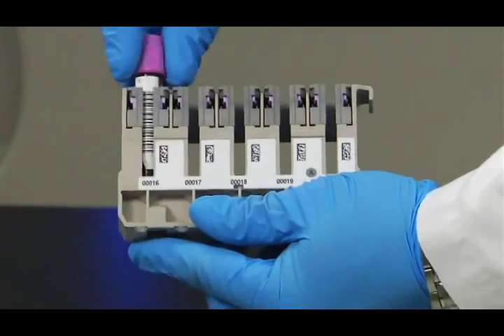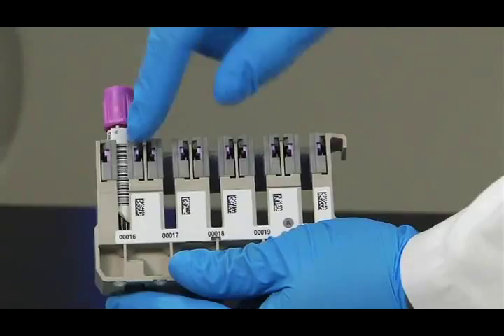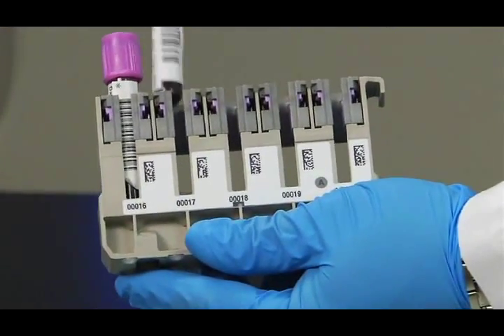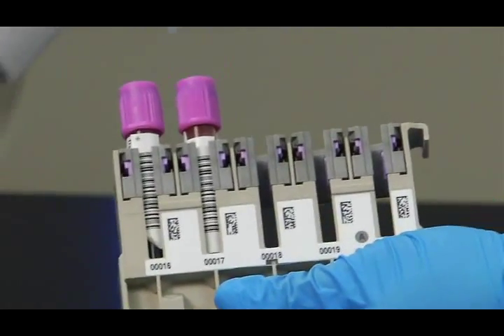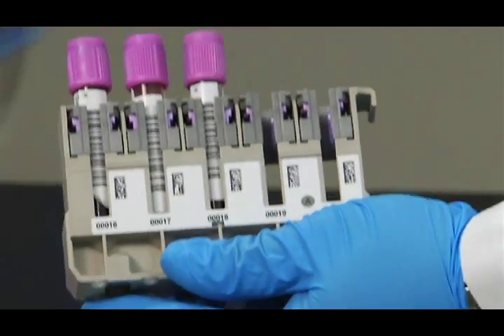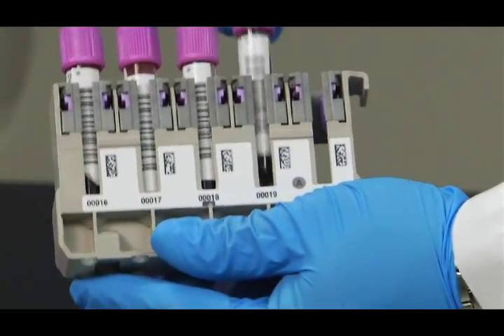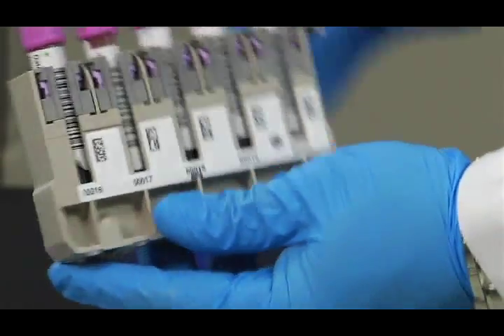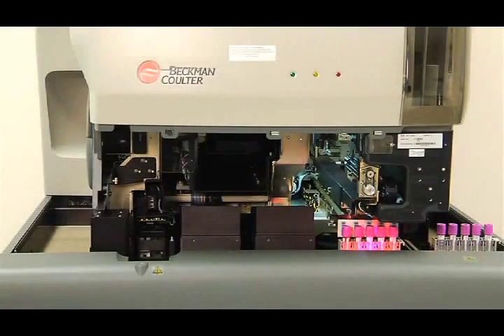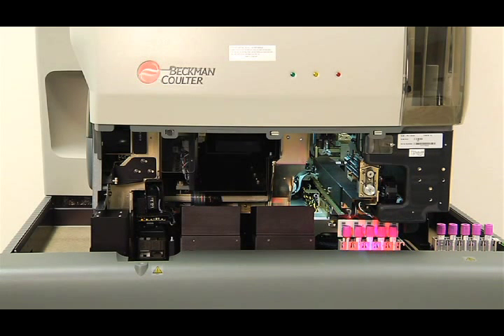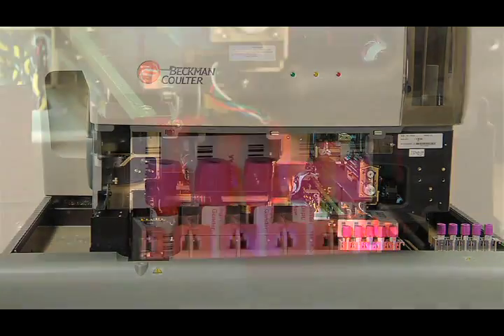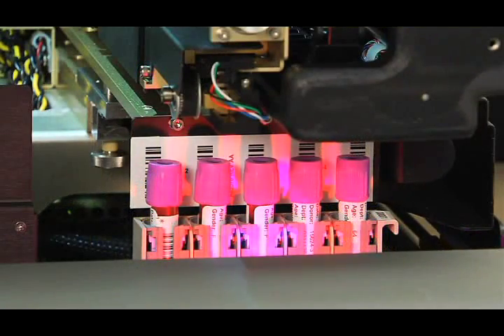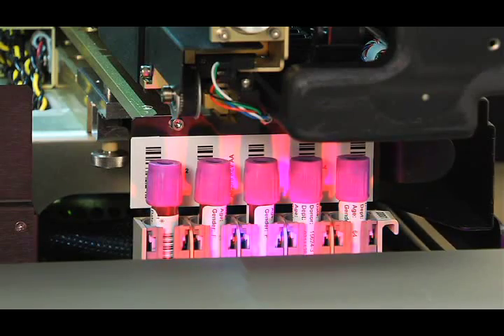Legacy barcodes typically scan a straight line on a UPC code. The downside to this is that the barcodes can be sensitive to scratches, ink marks, or low-grade labels, which can cause incorrect readings. On the other hand, the DXH SlideMaker Stainer's barcode reader uses a digital image with built-in fail-safe technology that can read even low-grade labels, virtually eliminating misread samples.